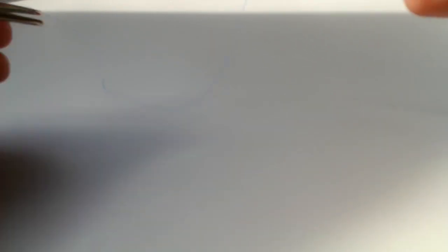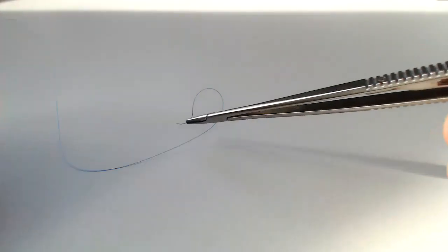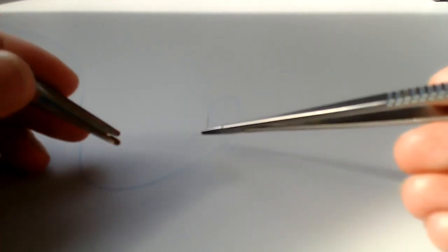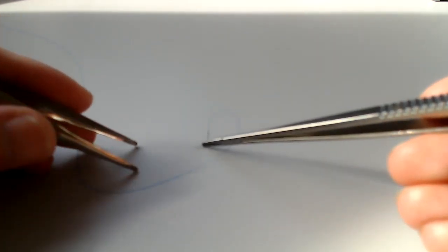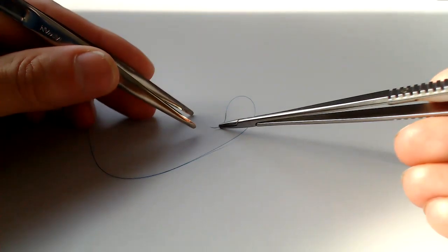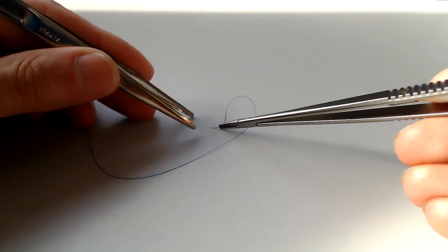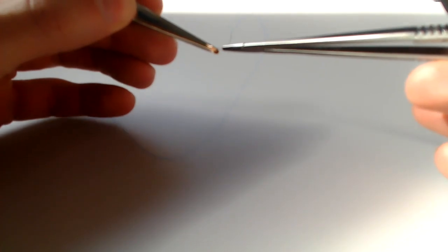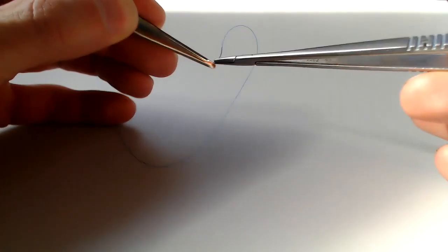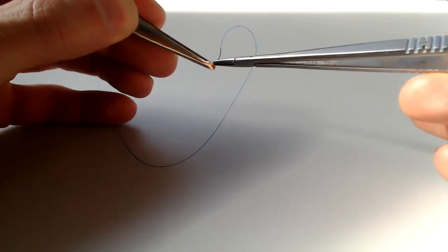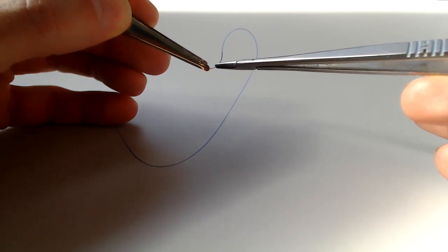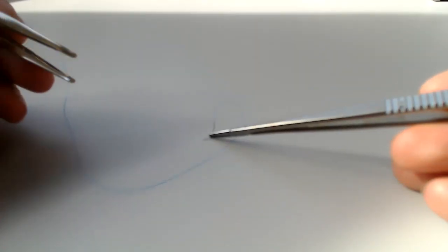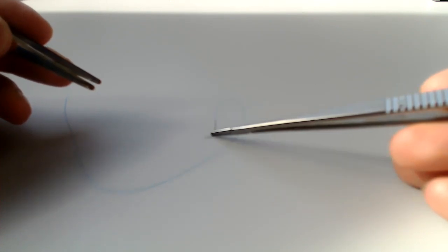A word on how to practically do that. A couple of different ways. One is, well, in general, reduce a three-dimensional problem into two dimensions and that just makes things a little easier. So in general, lay it down on a flat surface. You don't want to do mid-air, it's like mid-air refueling when you're trying to get everything all coordinated like this with your pickups in mid-air.